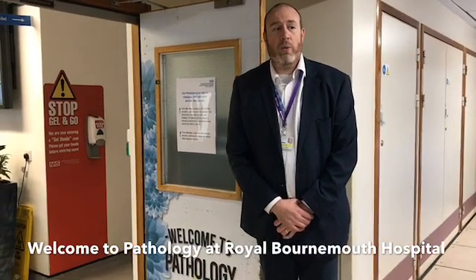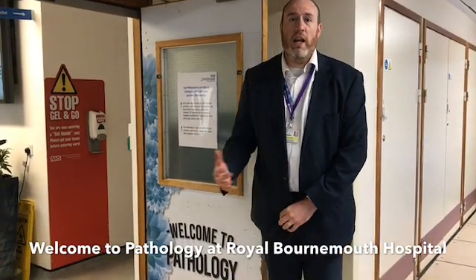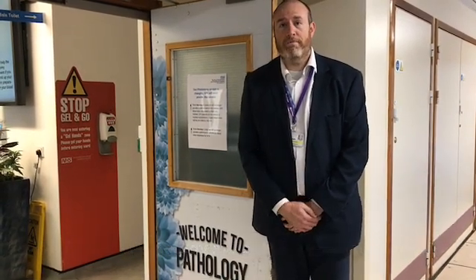Hello, my name is Nathan Vaughan. I'm a biomedical scientist and welcome to Pathology. Here we take all your samples and we send them through to our different departments so that we can analyze and give you results.